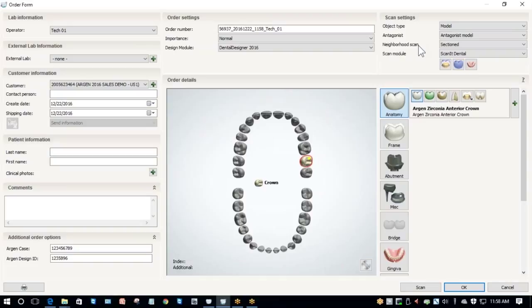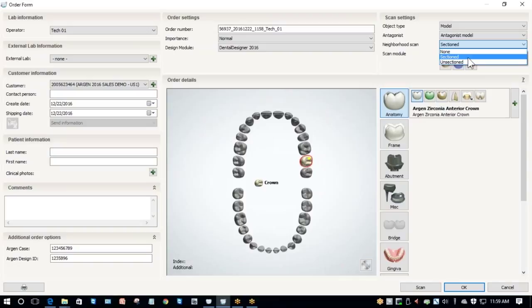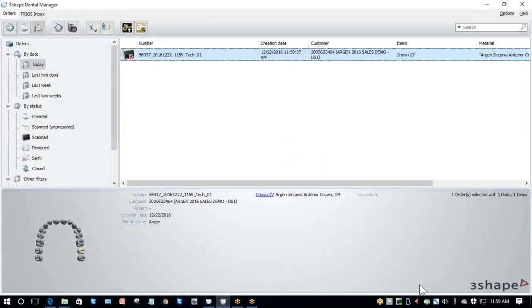Next, you have Neighborhood Scan with three options: Unsectioned, Sectioned, and None. None only really works when you're scanning for frameworks and allows you to scan just the die without scanning your working arch. Sectioned means I have a die to scan with a model. If you have a cut and sectioned model, this is what you would select. If you're scanning a solid model but also have a die to scan, then you can also select Sectioned. However, if all you have is a solid model with no die to scan, then select Unsectioned. In this case, I do have a removable die, so I'm going to select Sectioned.